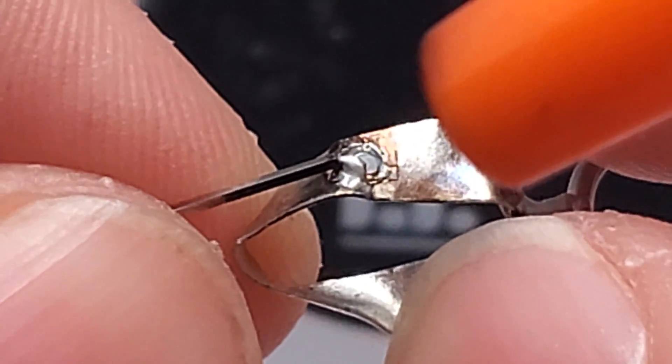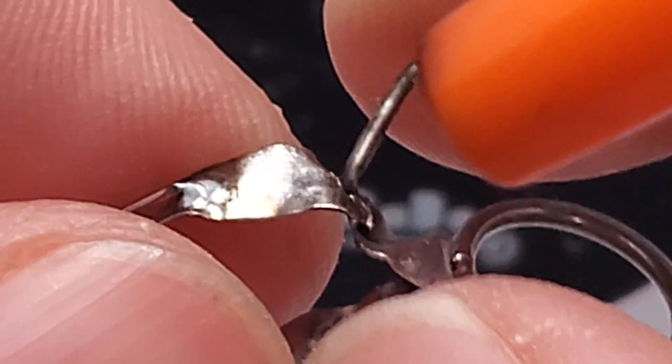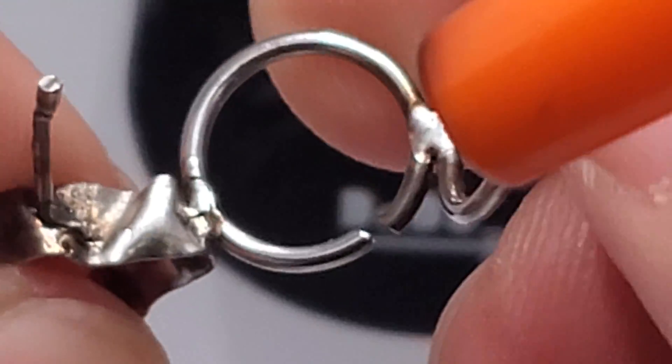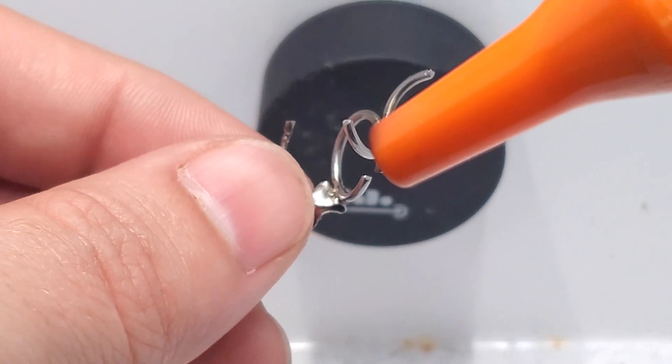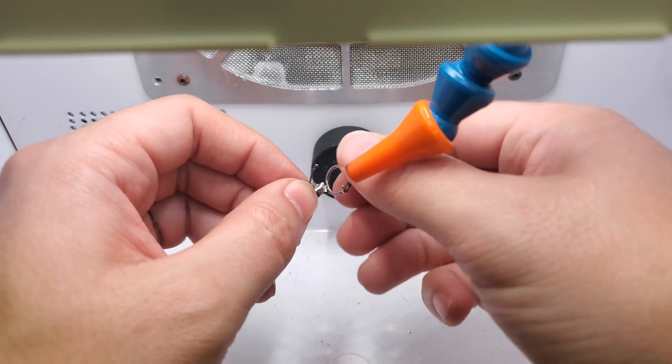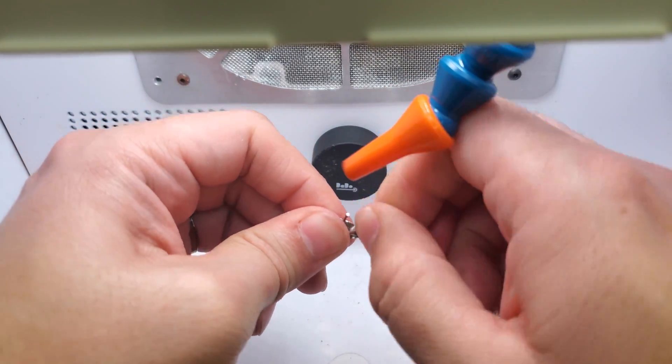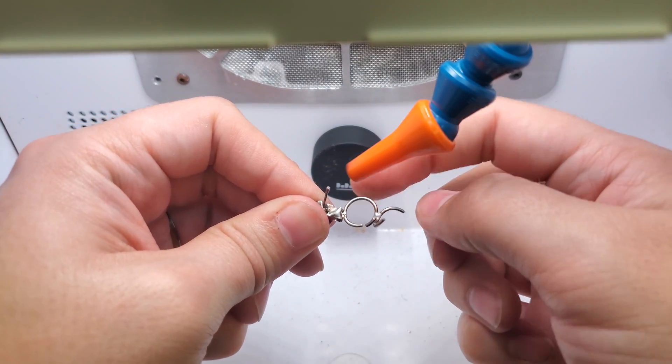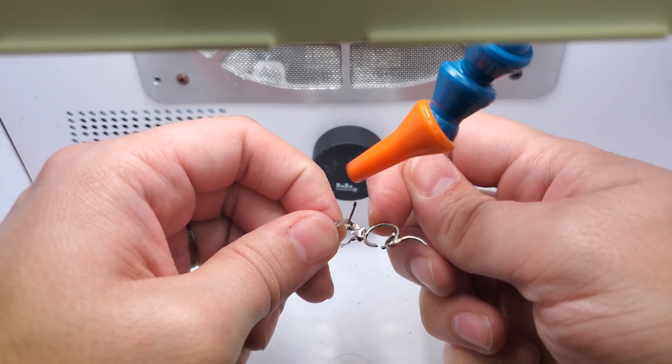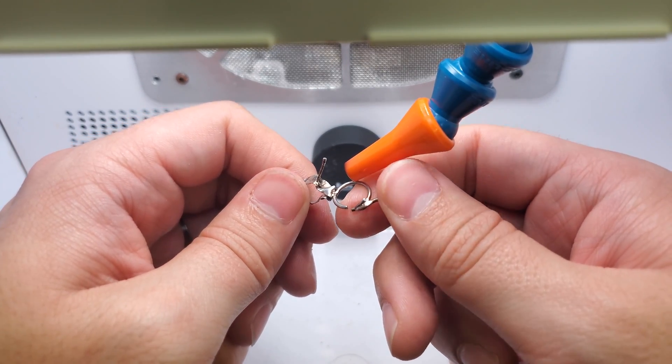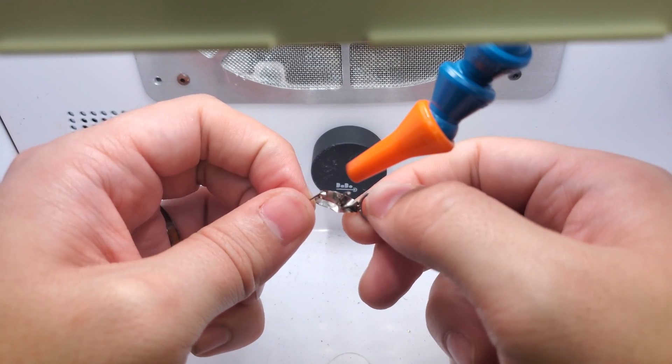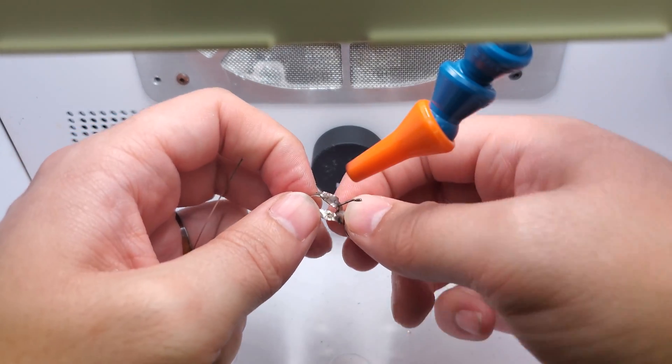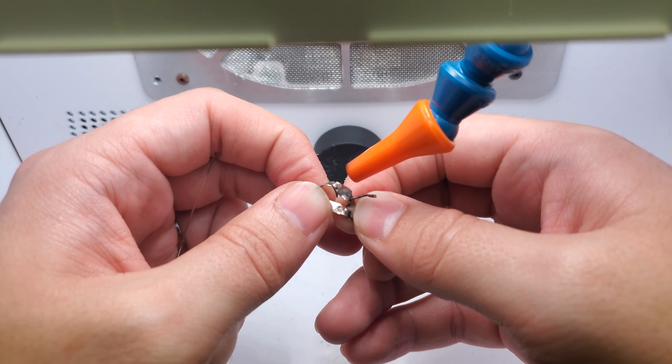These are the two things I like to employ to give the most success to bonding wires to this. As you can see, I did a giant ring to this, and it's strong enough that I'm able to bend this back and forth. The molar band will fail before this weld does, just to give you an idea of how strong these things are. The only reason I'm able to break this off is I've made it thin enough that I can give enough leverage to break it off, and it's pretty thin at the joints.